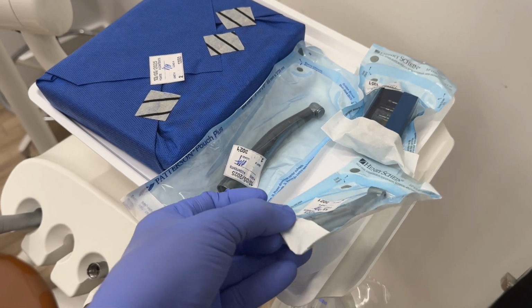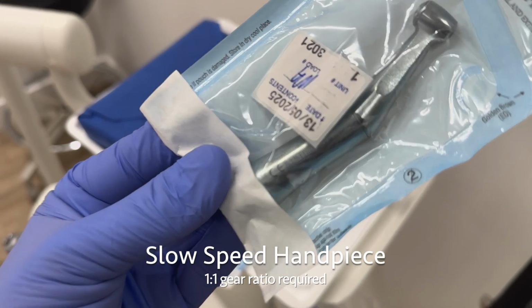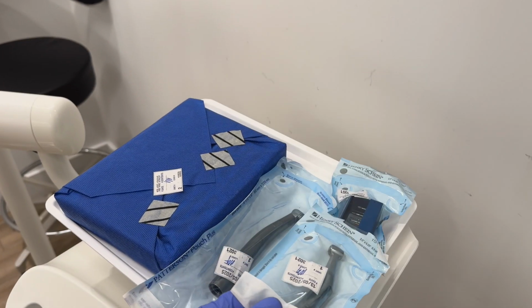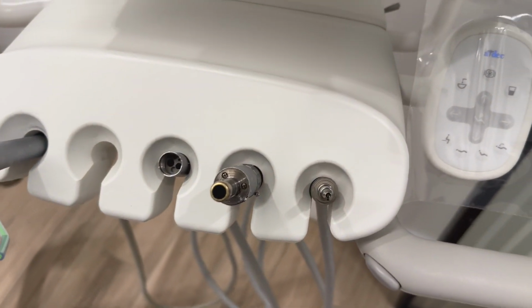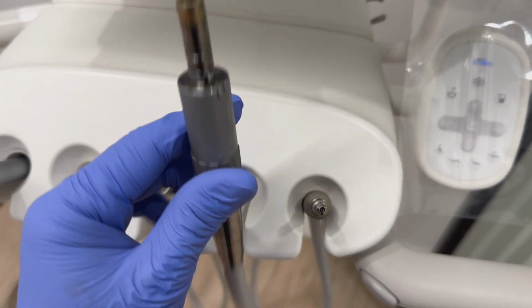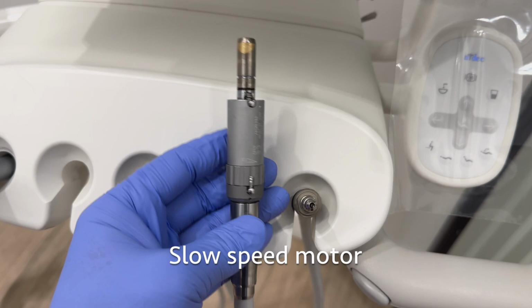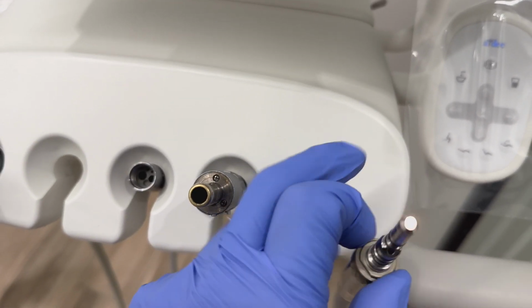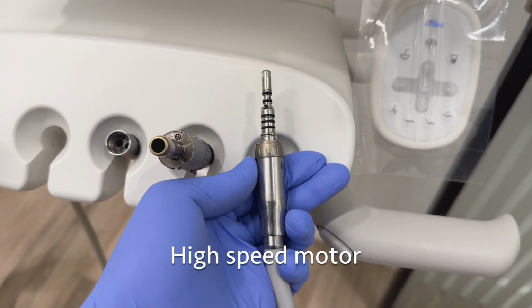your slow-speed handpiece as well. It's important to have a 1-to-1 gear ratio. This is required for restorations. Typically, hygiene will use the 4-to-1 ratio. Make sure that they're not mixed up. It's always good to check that your high-speed and slow-speed motors are both in the correct position on the operator's side. Sometimes they won't work properly if they're sitting in the wrong housing.